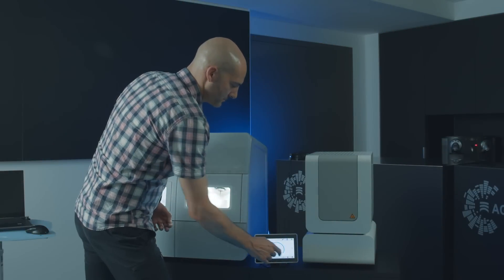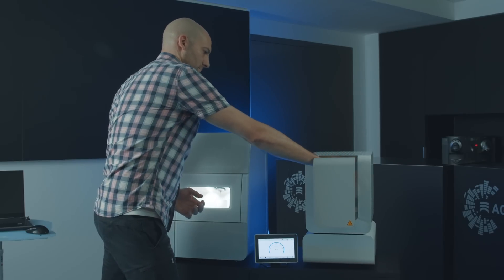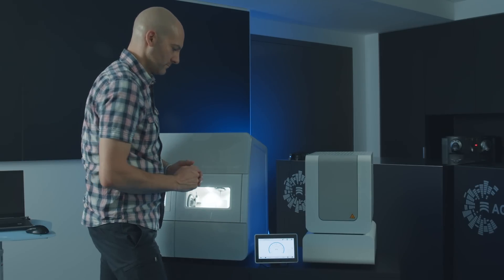Once you've removed your zirconia crown from the machine, it can now be sintered in under 20 minutes. One of the nice features about this furnace is that it can be controlled with an external touchscreen. You just place the crown in the furnace and start the program.